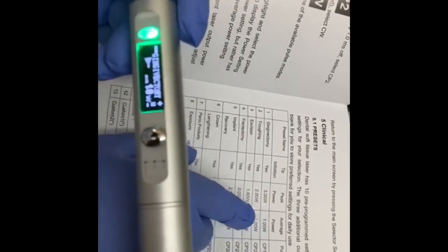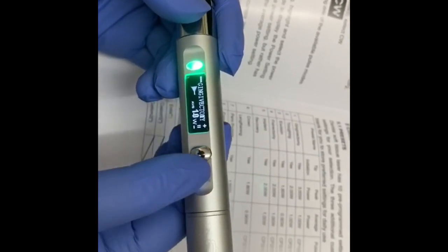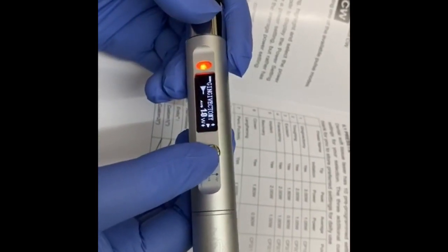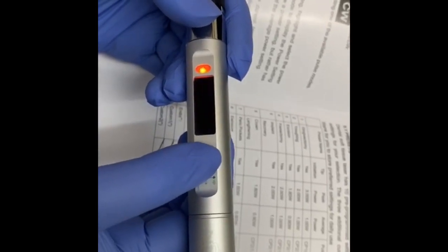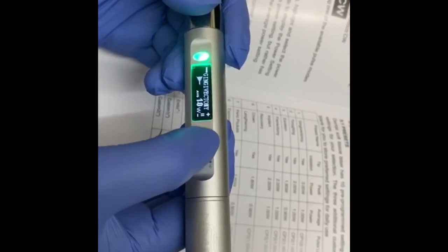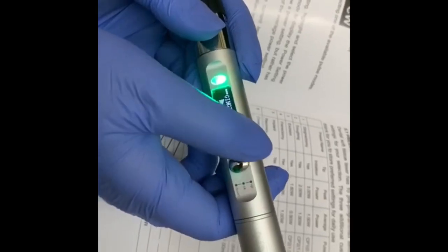Your peak, your average power one watt. You can see the average, it's written over here. You can decrease this by pressing this down.